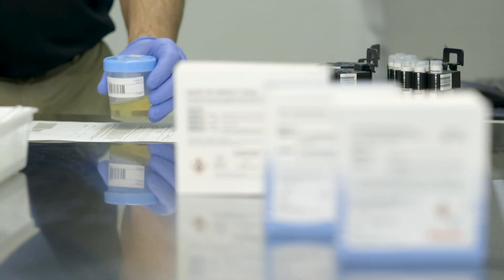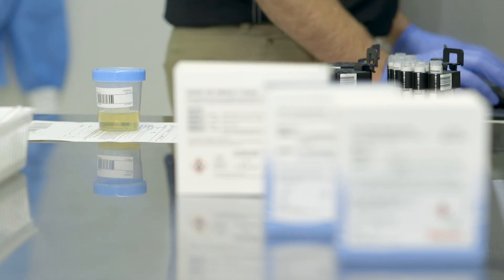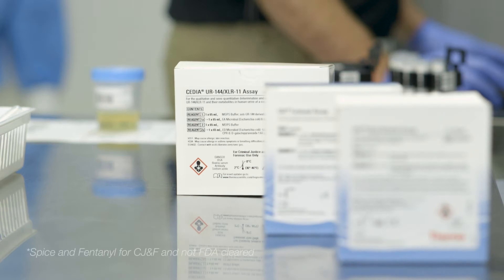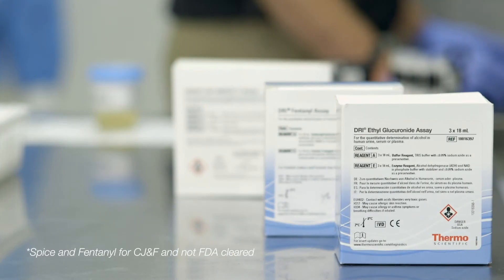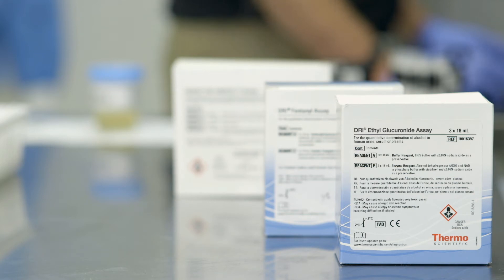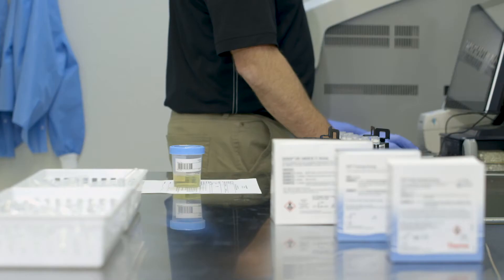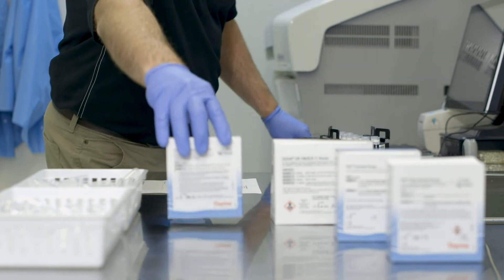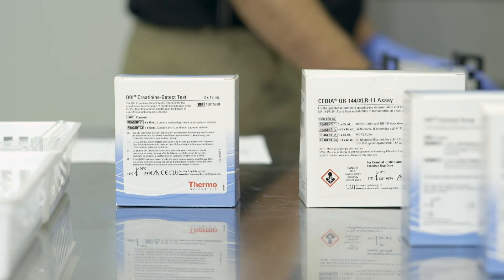Thermo Fisher Scientific offers 24 different drugs of abuse tests, which screen both prescription and street drugs such as heroin, spice, and fentanyl. An alcohol metabolite test, also known as ETG, can help reduce the cost of electronic bracelets or electronic monitoring systems. Specimen validity tests can assess if participants have tampered with their urine specimens through dilution, substitution, or adulteration.